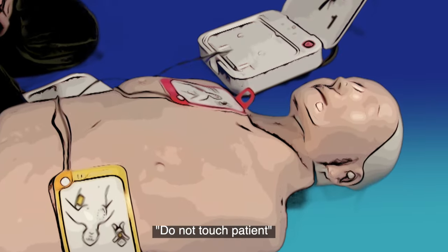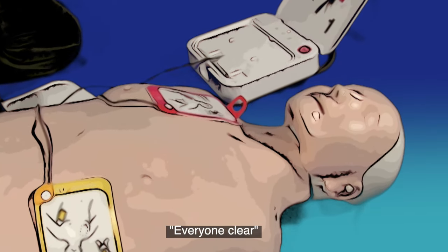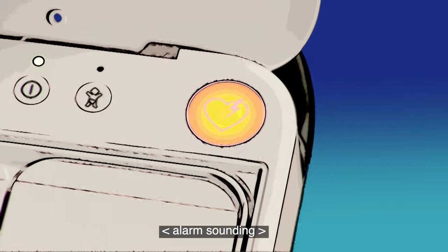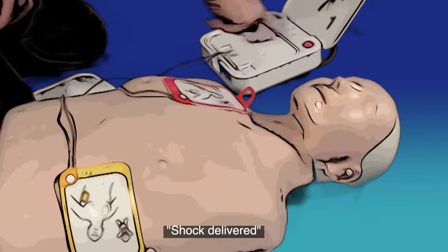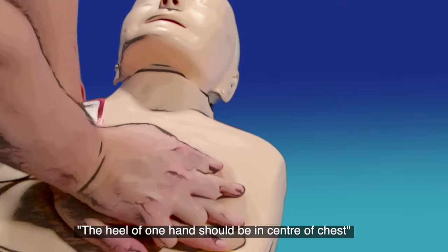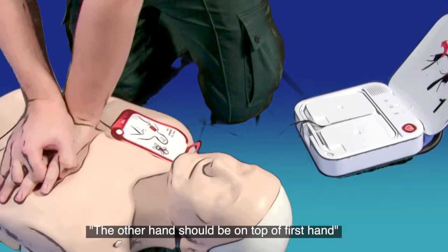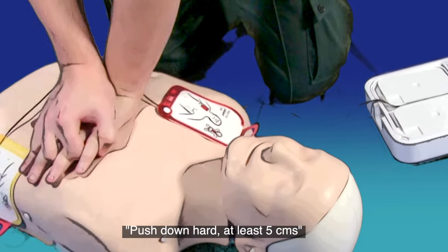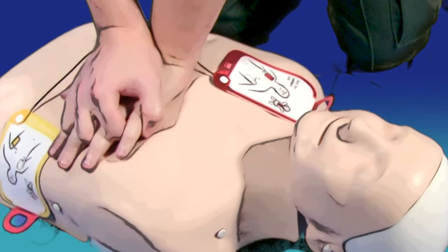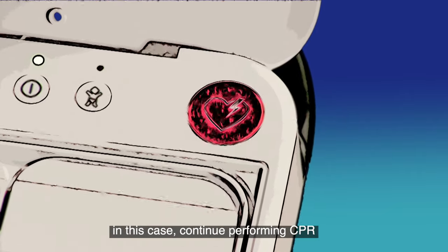Do not touch the patient while the AED is analyzing the heart rhythm. When prompted, ensure everyone is clear and press the flashing button. Shock delivered. Provide chest compressions to the beat — the heel of one hand should be in the centre of the chest, the other hand on top, and push down hard at least 5 centimetres. The machine may decide that a shock is not required after it has analysed; in this case, continue performing CPR.